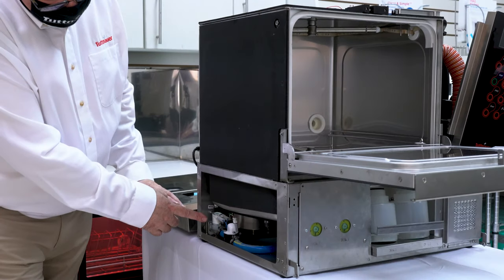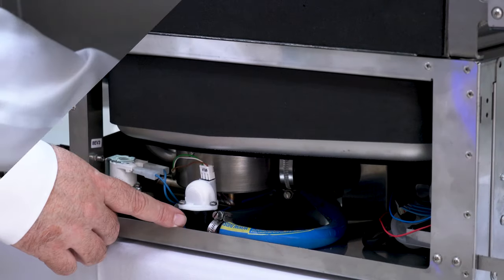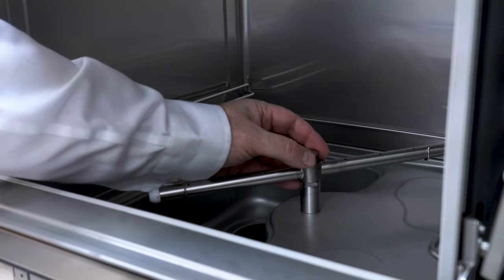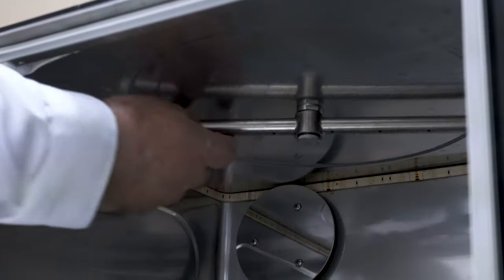The water dispensers can unscrew to come off and can be soaked and cleaned.